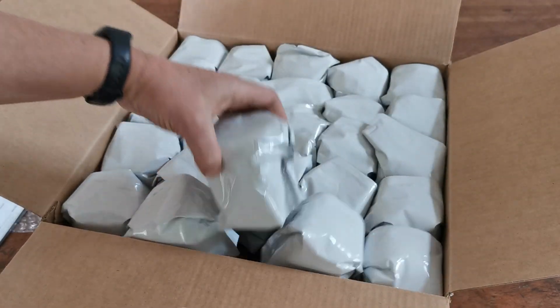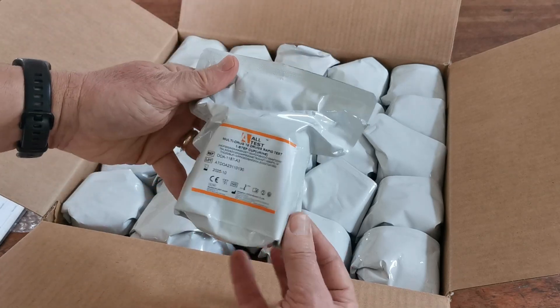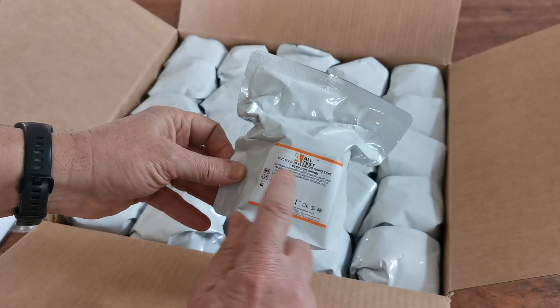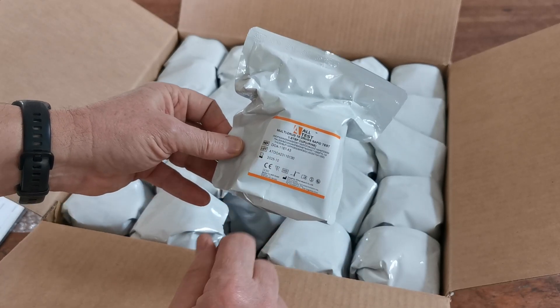These are the 25 individually foil-wrapped carton contents, and if I show you one of these foils, you'll see that it's slightly shrink-wrapped with the combination on the front, the Altest branding, and the lot and expiry number.